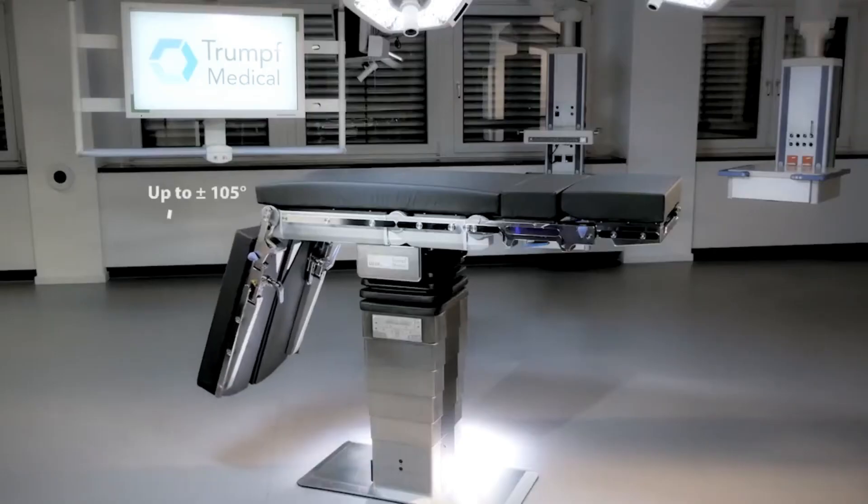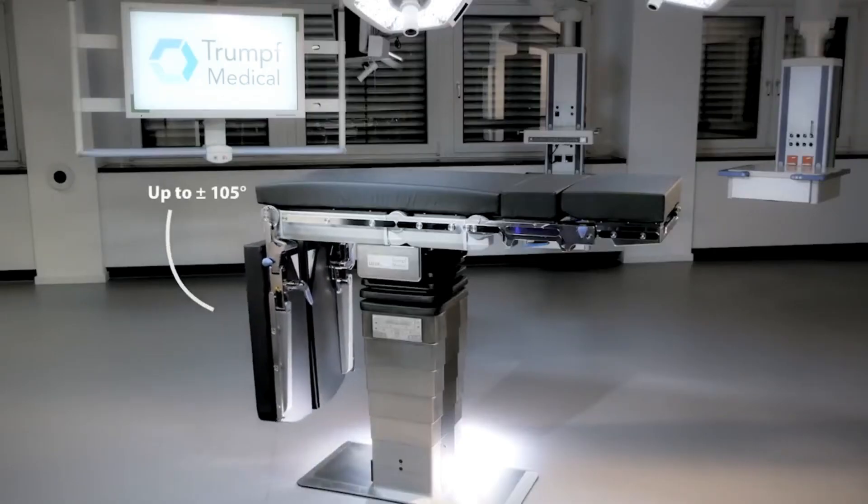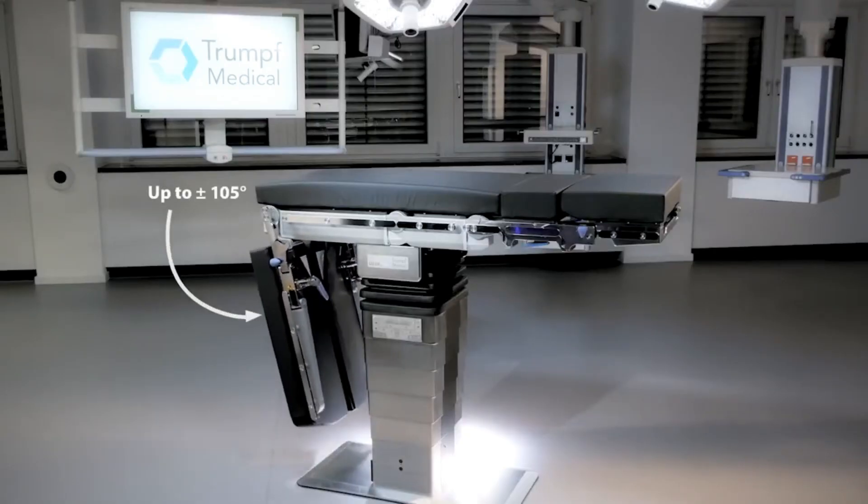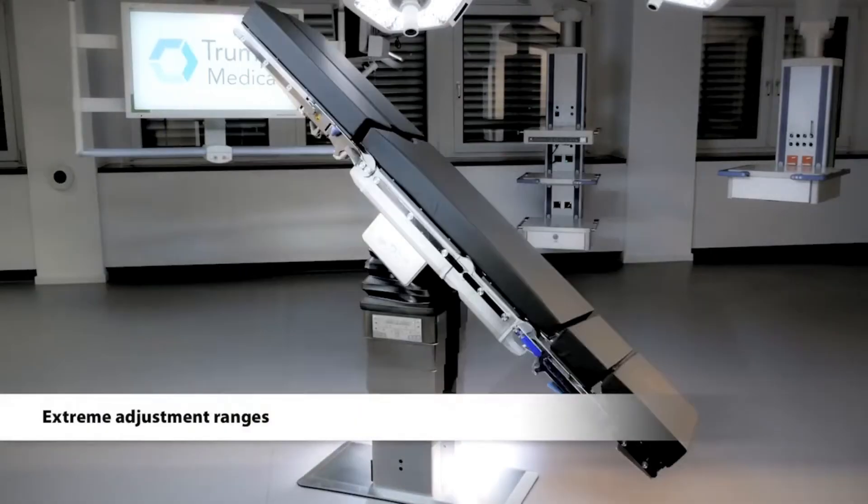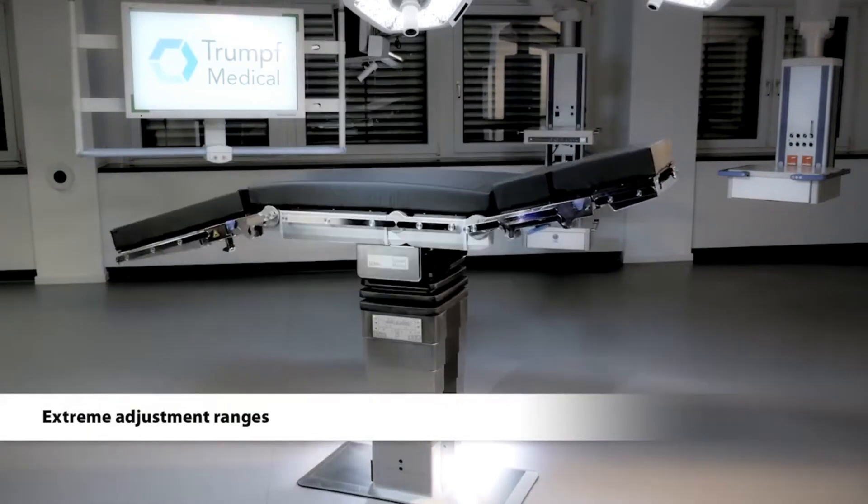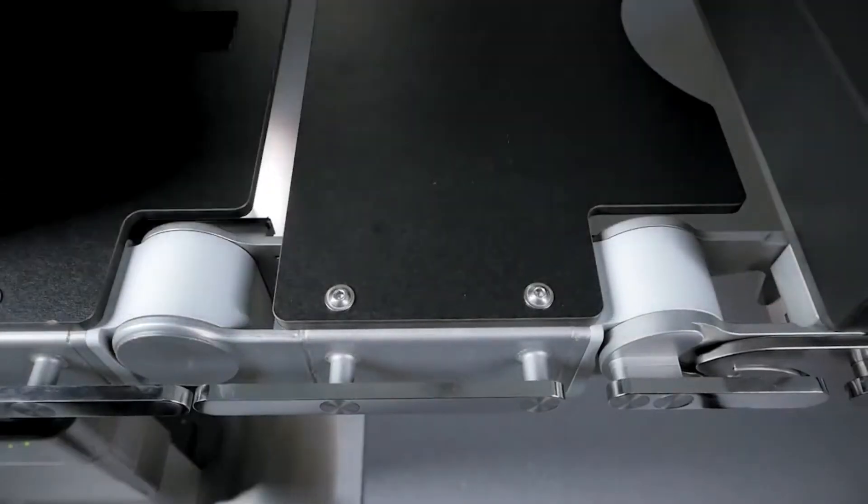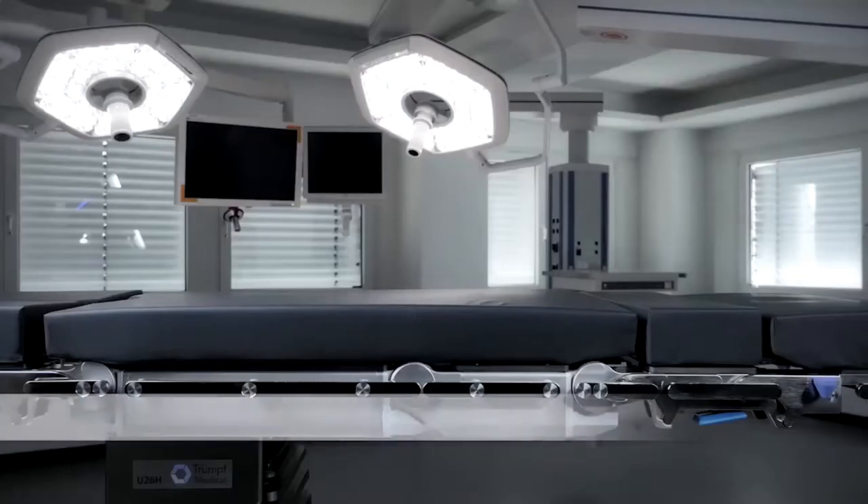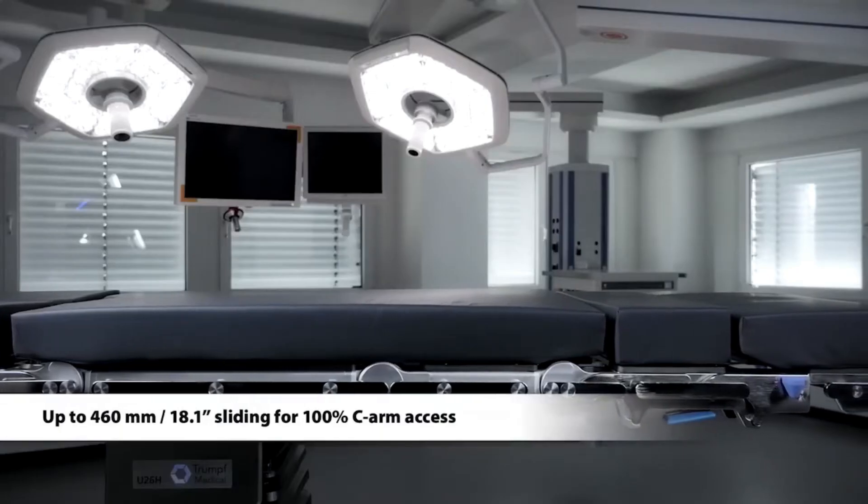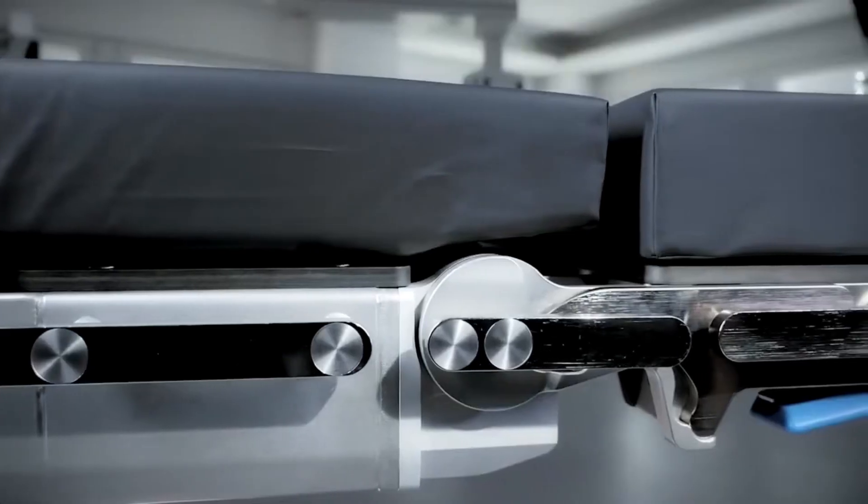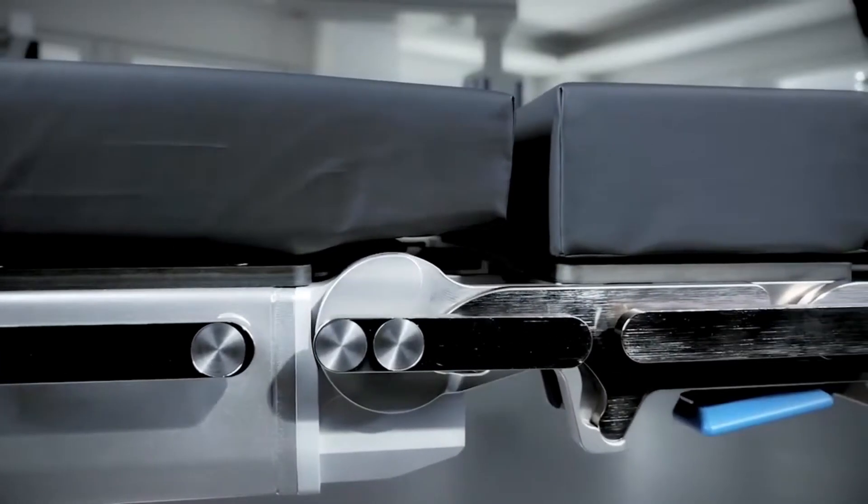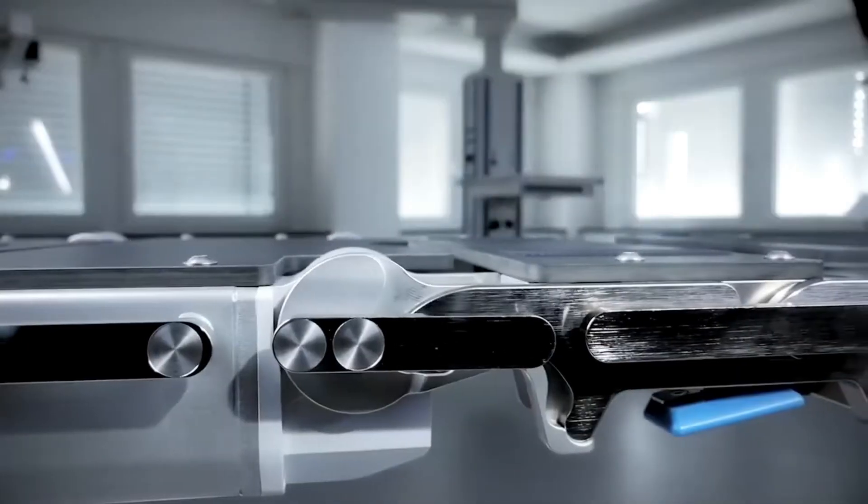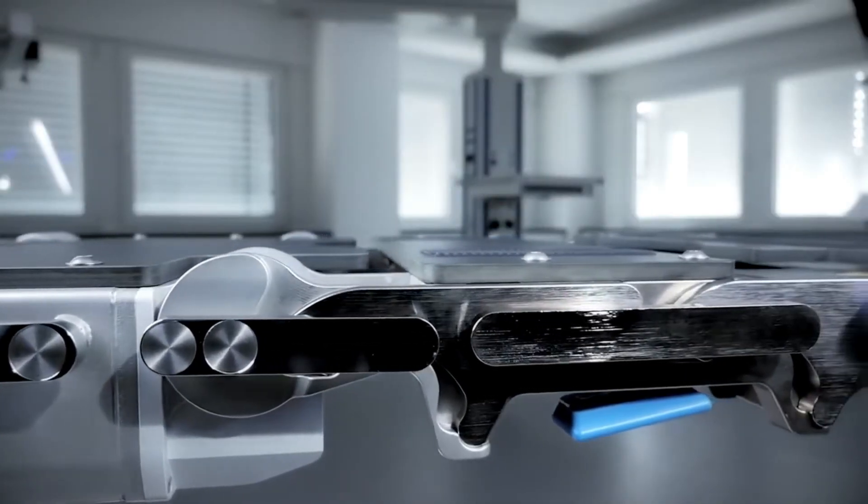The patient's primary surface is typically divided into several sections: head, back, seat, and leg. It's made of a radiolucent material allowing x-rays to pass through for imaging and can be easily adjusted to various positions. The foundation of the table provides stability and houses the mechanisms that allow the table to move.